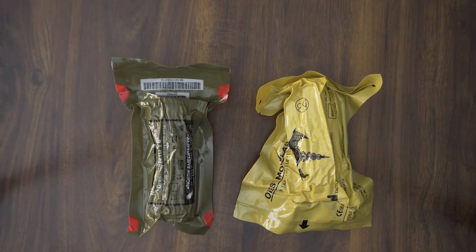So like I said, today we are comparing the North American Rescue's Emergency Trauma Dressing and the Olase Modular Bandage. Now surprise, surprise, I do have an opinion regarding these, but these are both great bandages with slightly different uses, although ultimately they're both used to control bleeding.